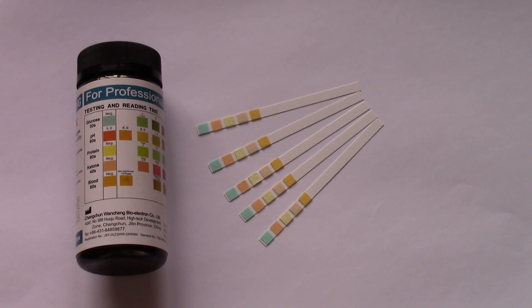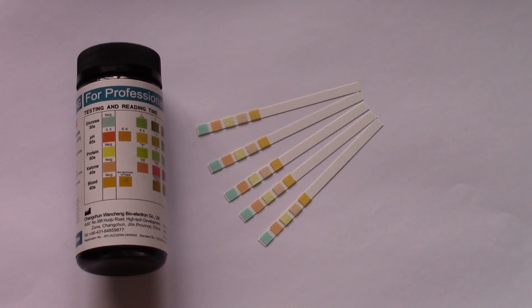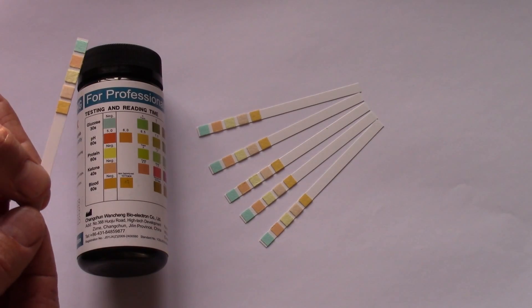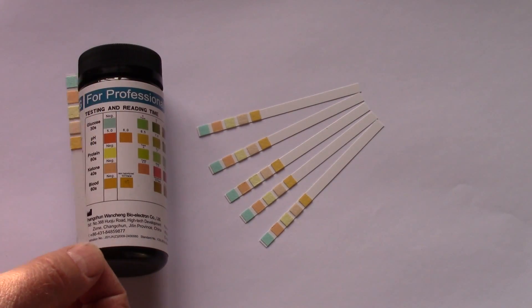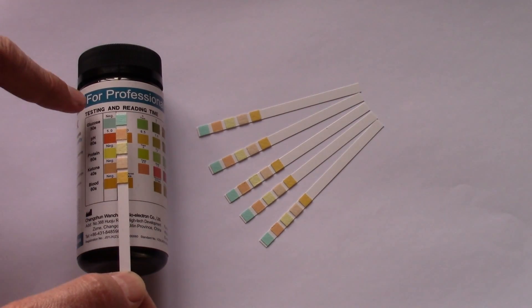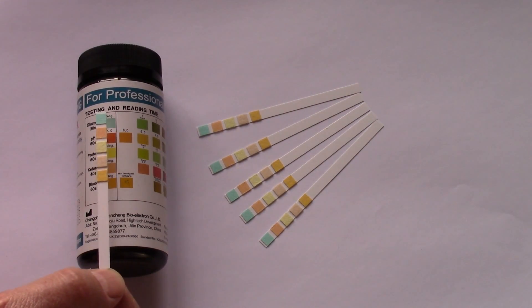We've run through what you can test for with the urine test strips. Let me show you how to interpret your results. On a five pad, the way you hold these is on the end away from the pads which are dipped into the urine, and then if you hold those upright you will see that they match very closely the five parameters shown here for negative results.